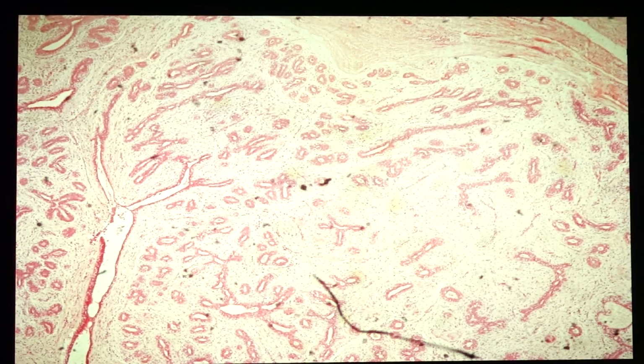We are going to discuss today on the breast pathology. So we have a total of 7 slides, starting with slide 73, that is fibroadenoma, followed by 186, that is fibrocystic change of the breast, 212 sclerosing adenosis, 185 invasive ductal carcinoma, 217 Paget's disease, 218 invasive lobular carcinoma, and 221 medullary carcinoma. So our first slide is slide 73, which is fibroadenoma.